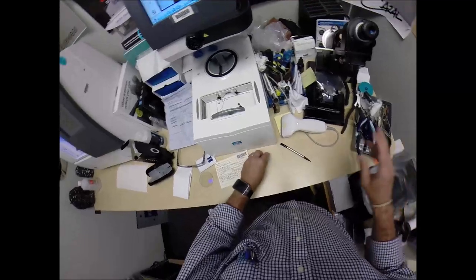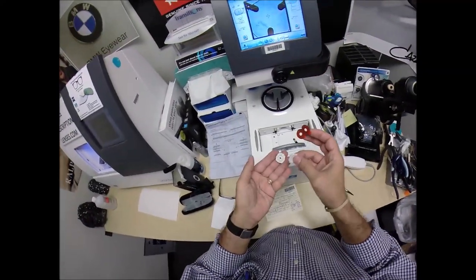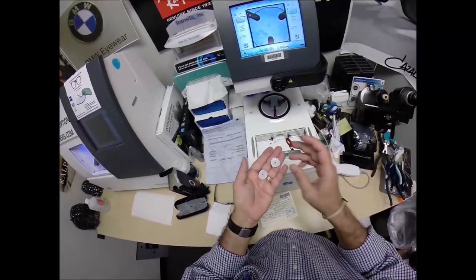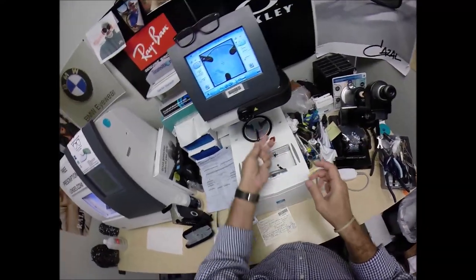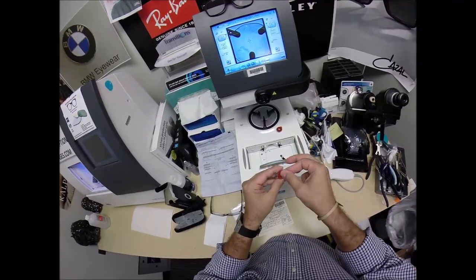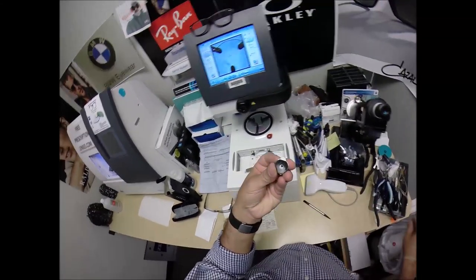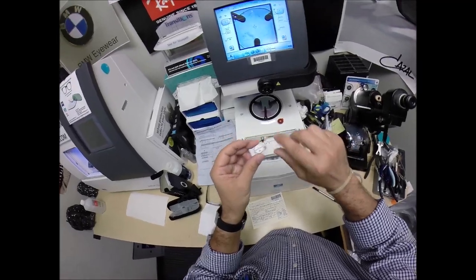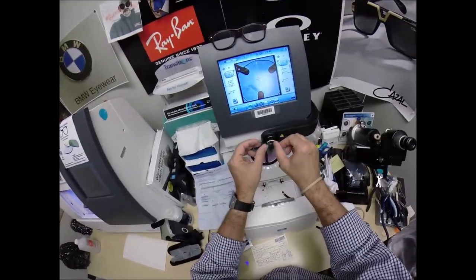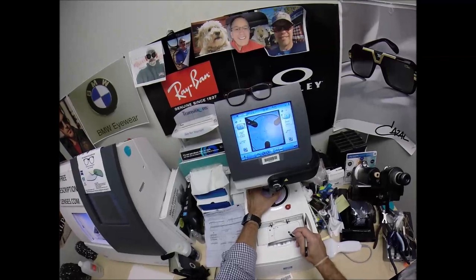So this is a block, or as I like to call it, Jenny from the block. I need to attach this to your lens while it is cutting. So I'm going to put a double-sided adhesive sticker. The black side is the sticky side. Put that one on the first block. Do the same thing for the second one. Pull the paper away to make the black side sticky. That silver button on the back is a magnet. It's going to do its job twice. The first time it's going to attach itself to a magnet there in the arm.